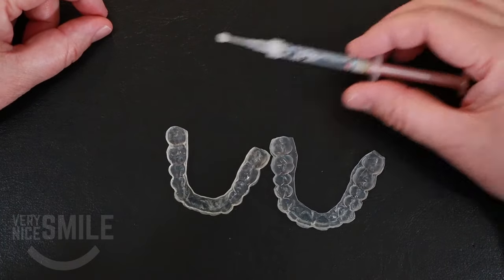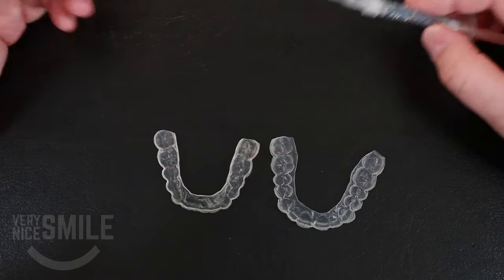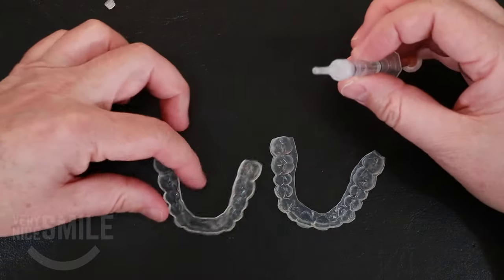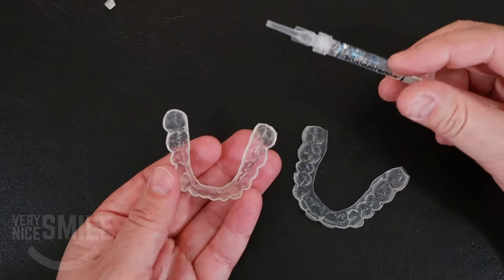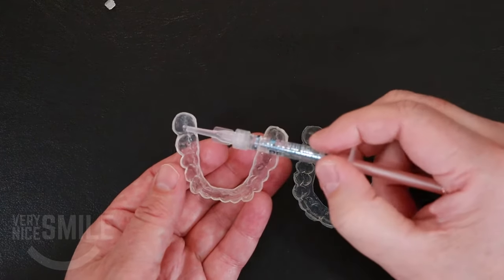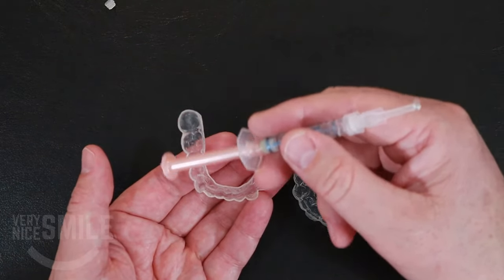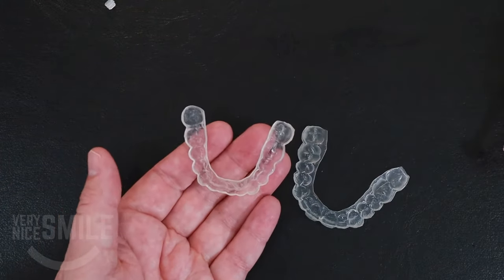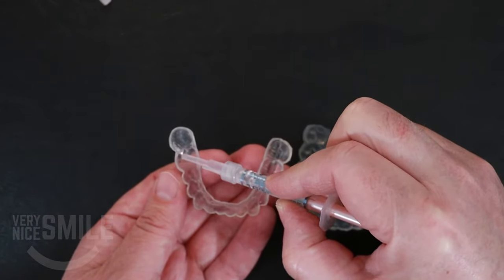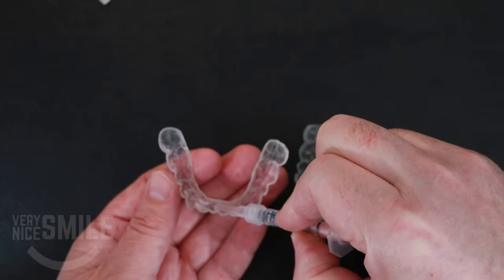I'm going to show you two different ways of loading the tube. I'll demonstrate one technique on the lower, one technique on the upper, and then you can play around and see which one works better for you. So we take the tube, take the little cap off, and the first method — this is the one Ultradent recommends — is just to lay a continuous bead of gel. You start in the back, and since it's a U-shape, you want to place the gel on the outside of the U, not the inside, because the outside is the part of the teeth that you can see. So you start in the back and just run basically a bead, kind of like as if you're caulking — just run a strip of it all the way through.